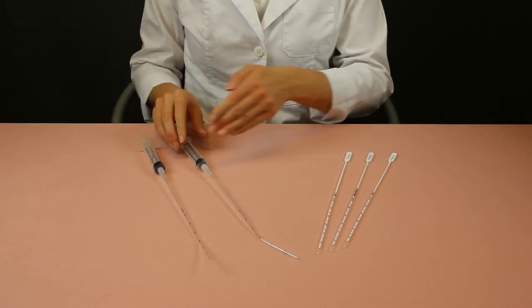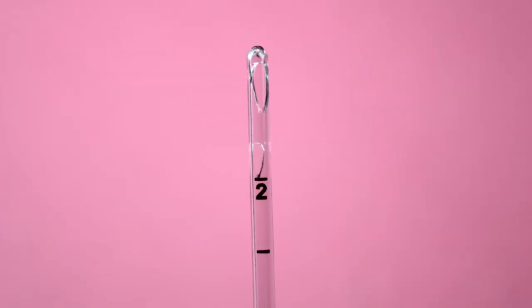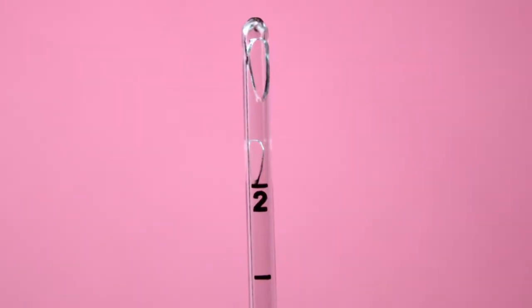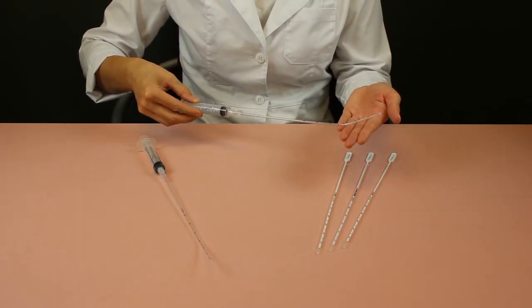For sensitive patients, the endosampler II has two holes which reduce suction power without sacrificing tissue collection.